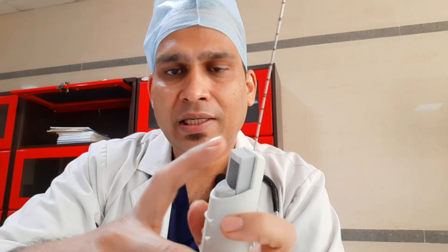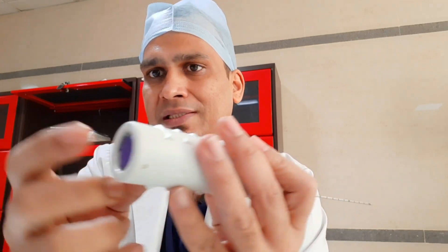The tip and notch together measure 2.2 centimeters. Each mark is 1 centimeter. This is the outer hollow needle and this is the inner sharp needle. Once we press the inner lever, the inner needle will go inside. Then once we press both levers inside — with both levers engaged, the needles are also inside. Pressing the firing button will release the lever and the needle will come out.